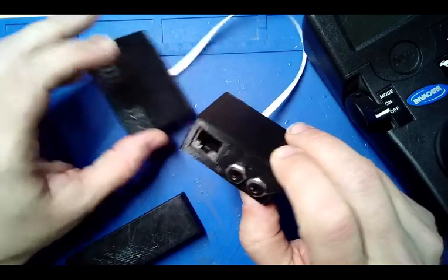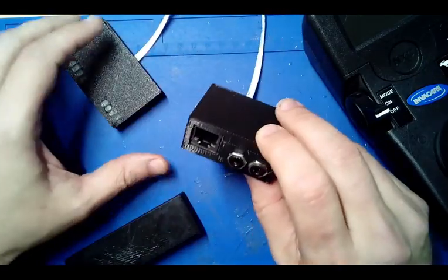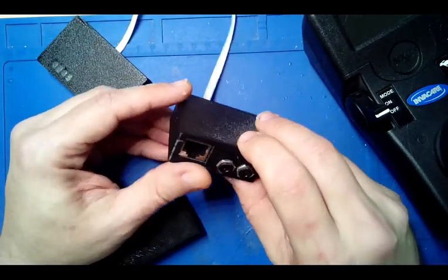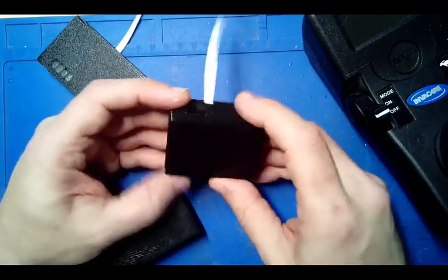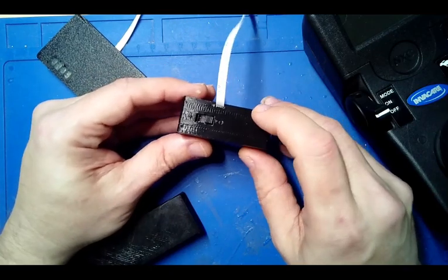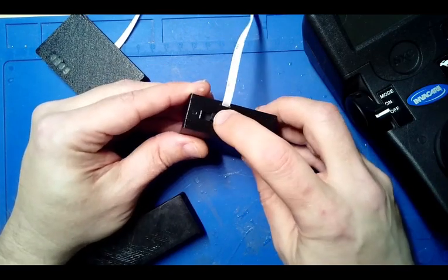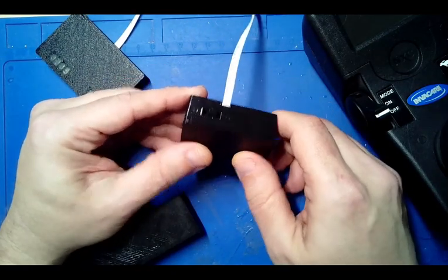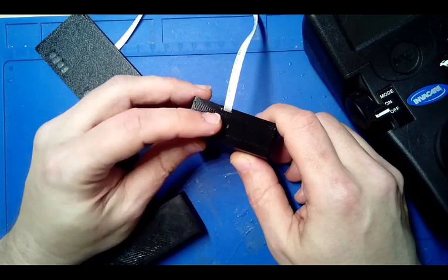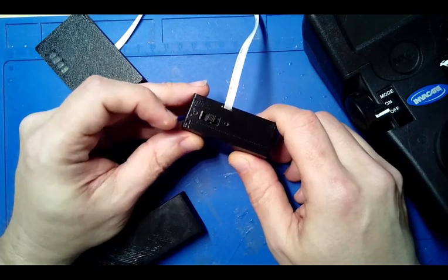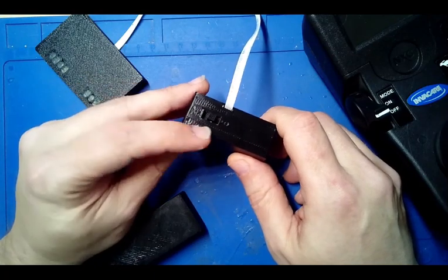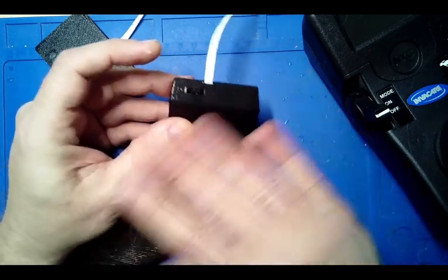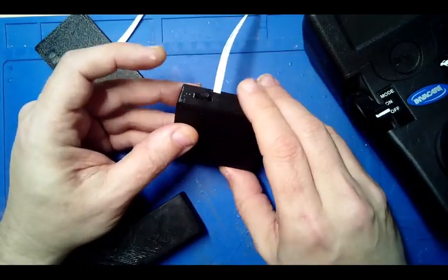What is new on the box is there's a little switch here now. It is a three-way slide switch. When it's in the middle, the unit's completely off, so it doesn't matter if you are toggling this or not, it is off.